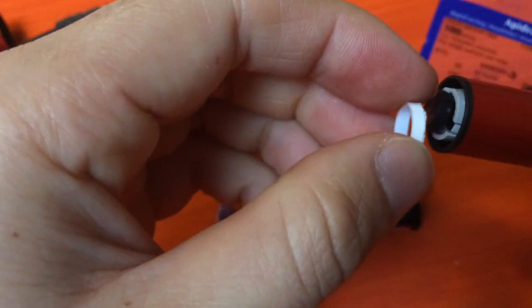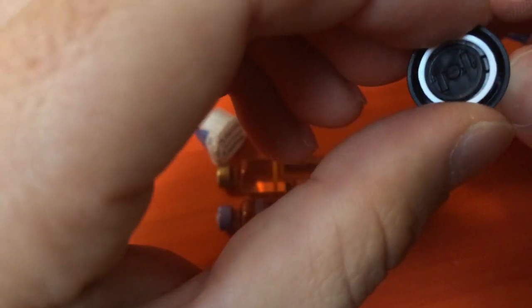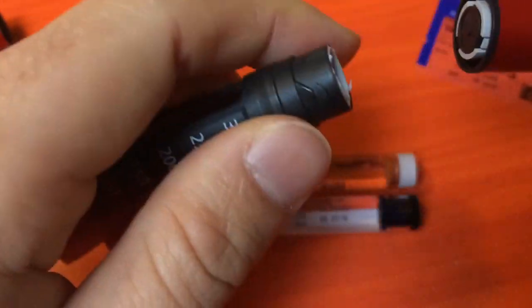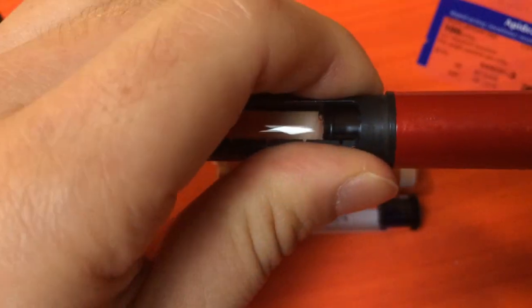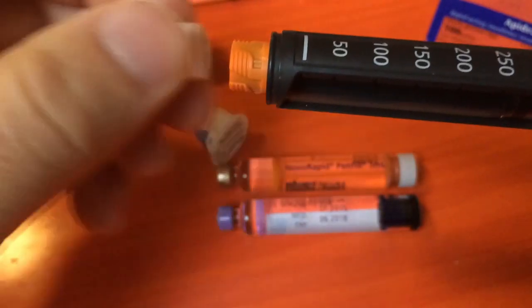This plunger fits directly over the top of this, so it doesn't foul the plunger at all. It just spaces the vial. Then you push the plunger all the way back in, click it on, and you're ready to go. Let's have a look if it works.